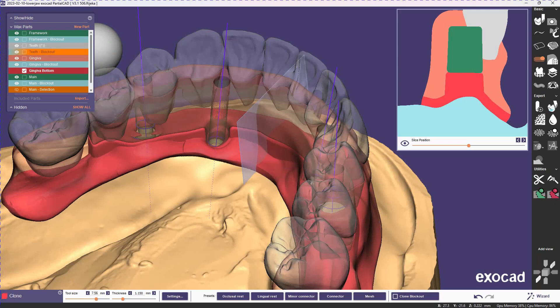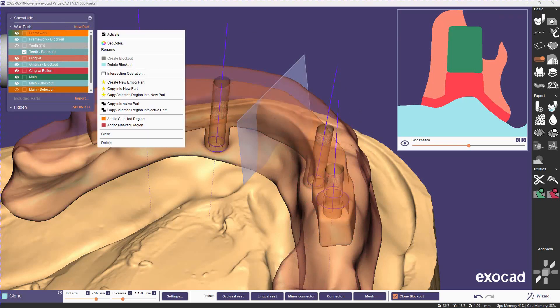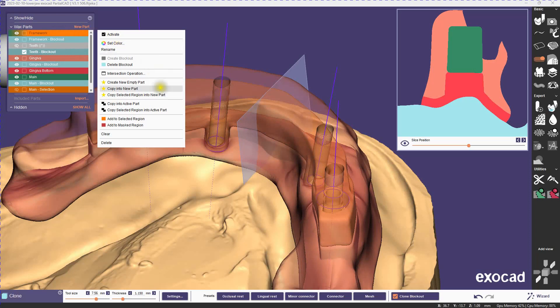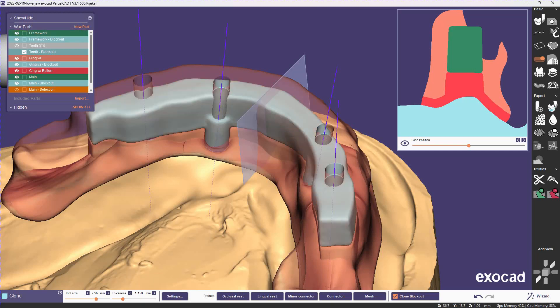The way we're going to do that is we're going to remove some material from the teeth, and we're going to do a very similar trick that we did before. We're going to copy the bar into the tooth block out, and then we're going to expand that area so that it'll be removed from the teeth, so that when the teeth are subtracted from the gingiva, it's not removing all the gingiva all the way down to the bar.